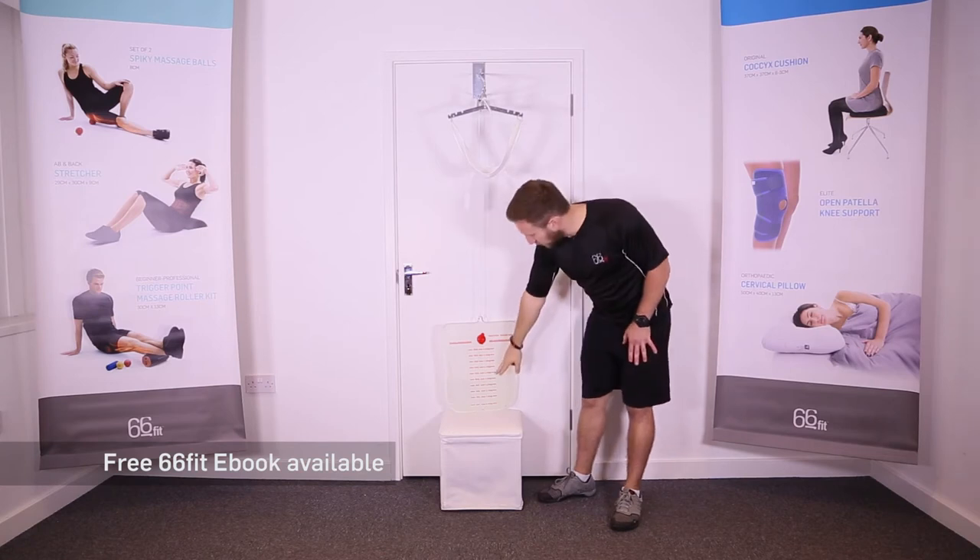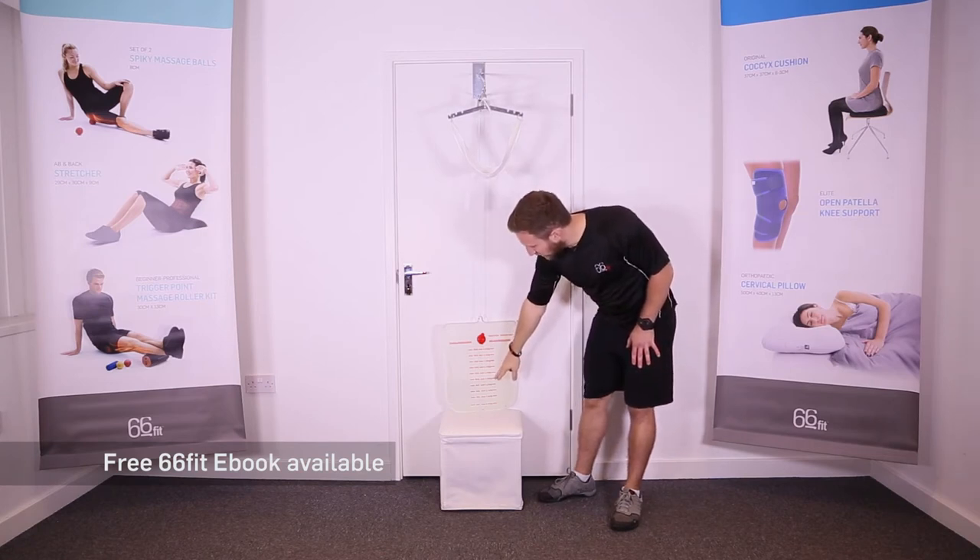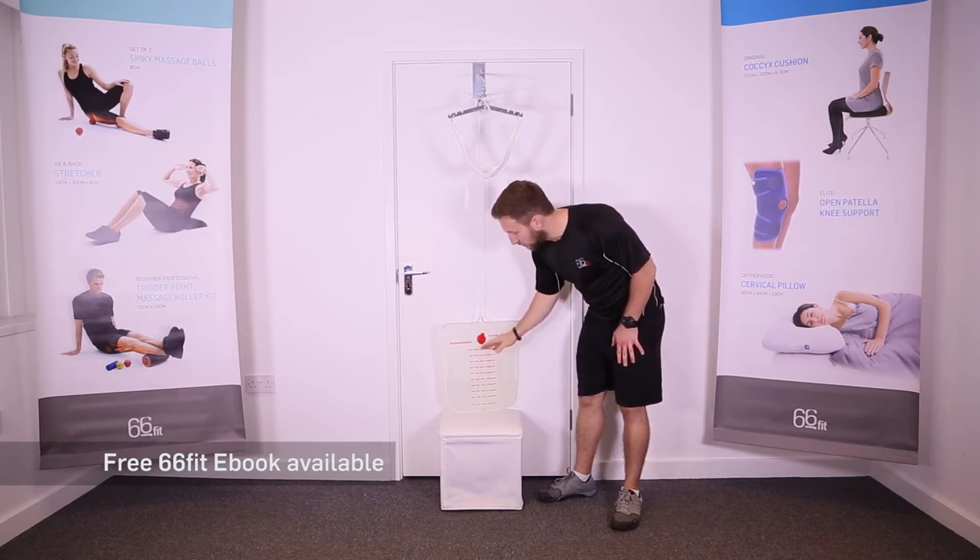You can set it up — we've got the bag filled roughly to halfway, you can see here, which is four and a half kilos. But as I say, make sure you speak to a therapist and get the right amount of water prescribed for your needs.